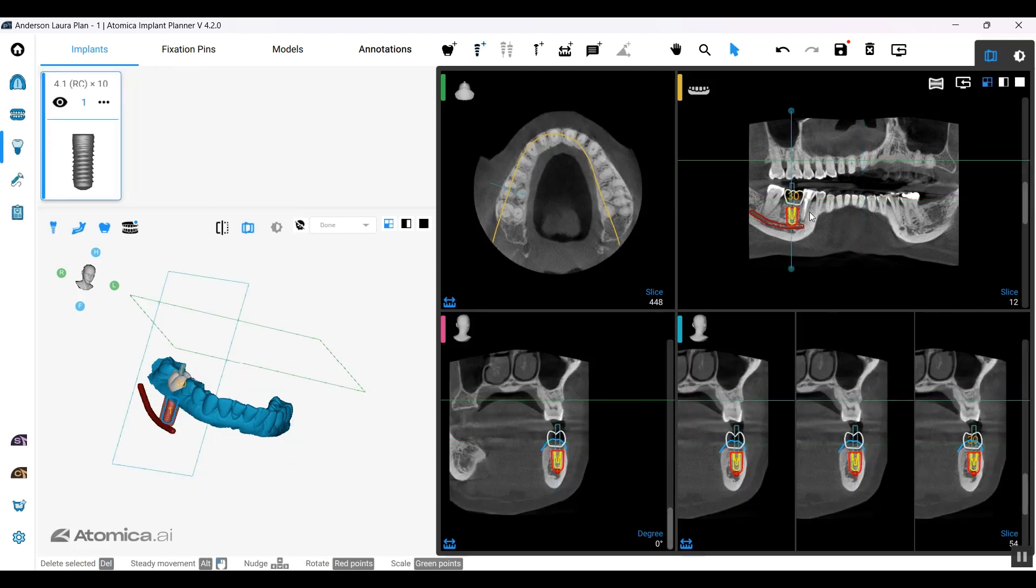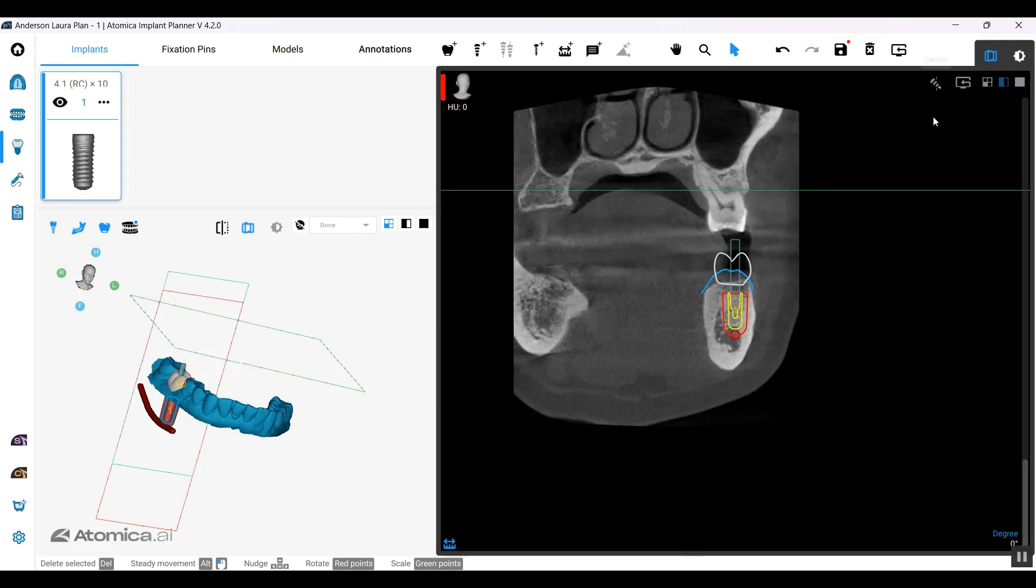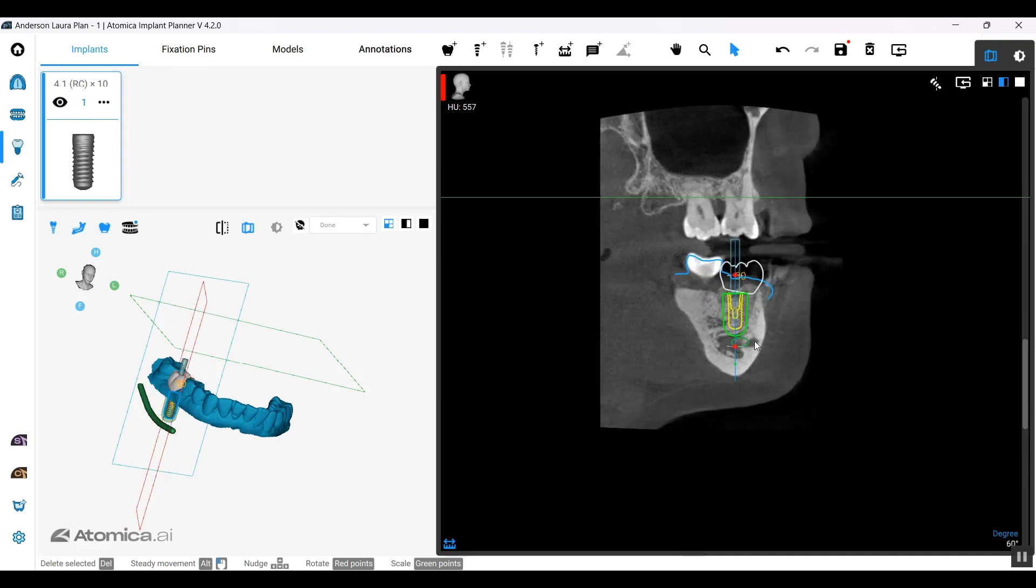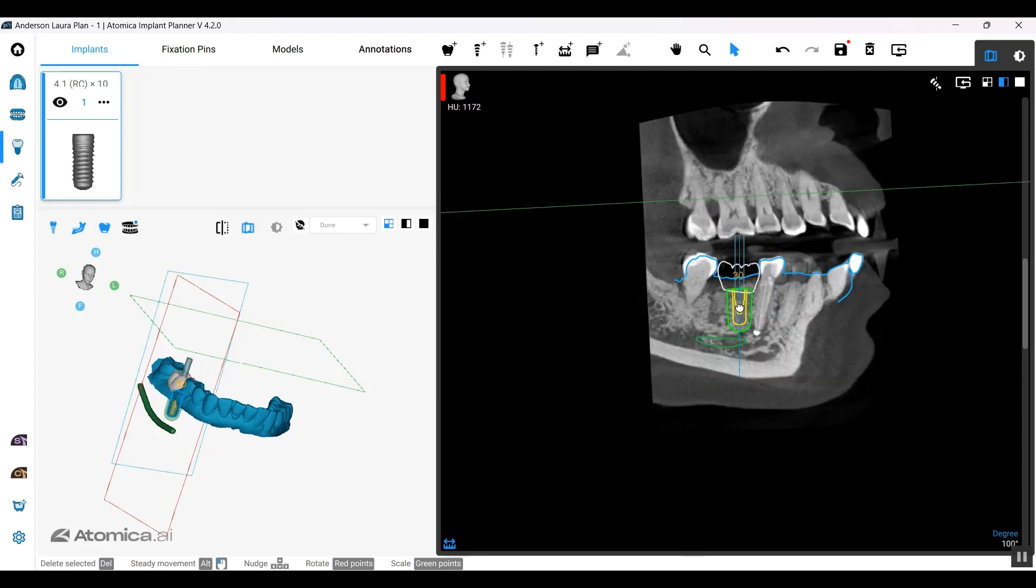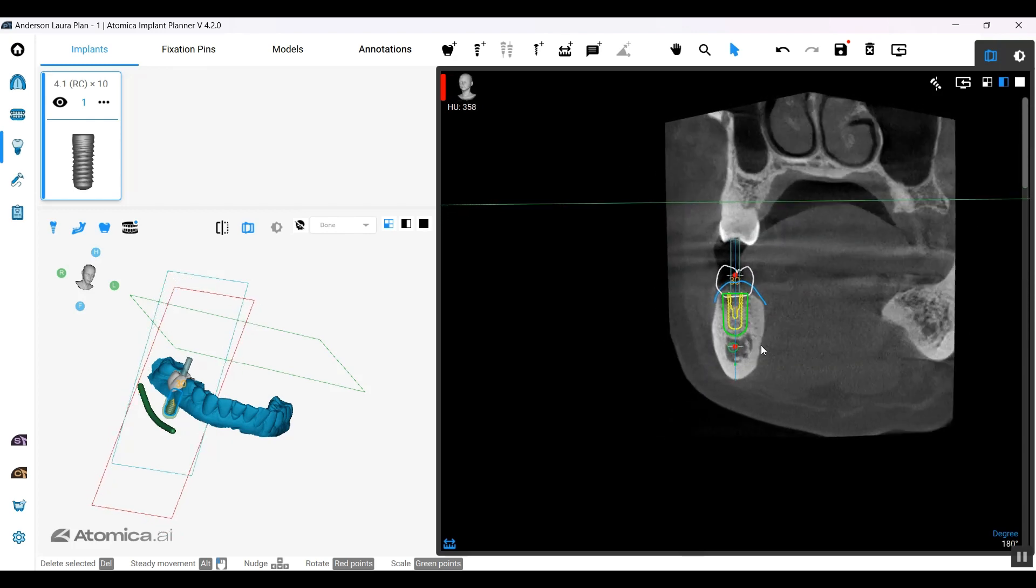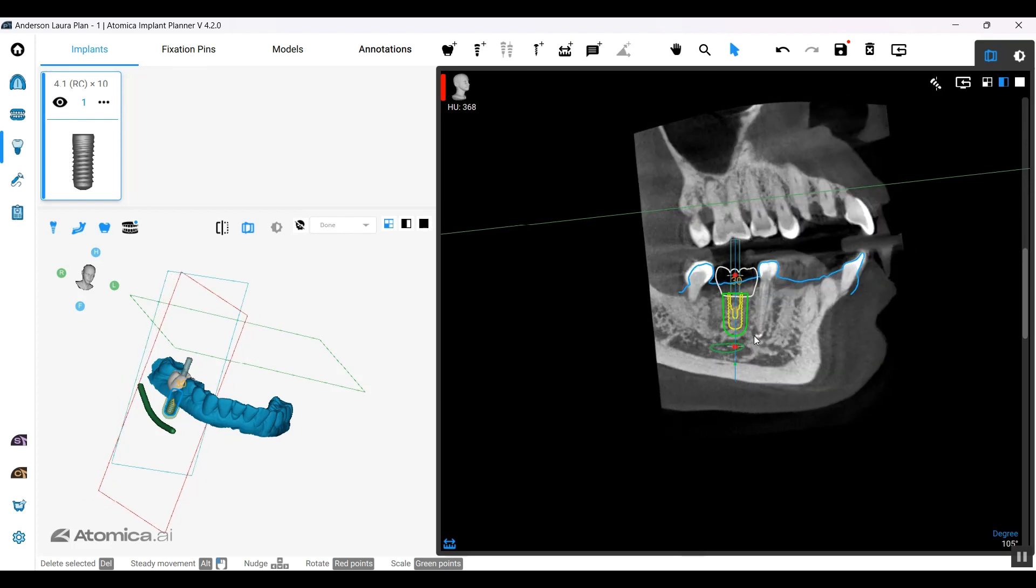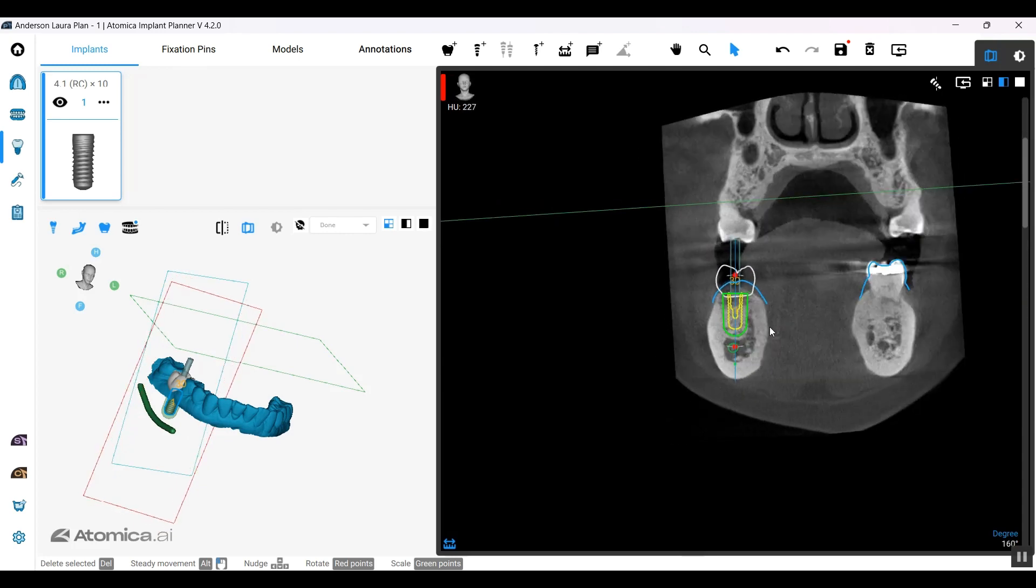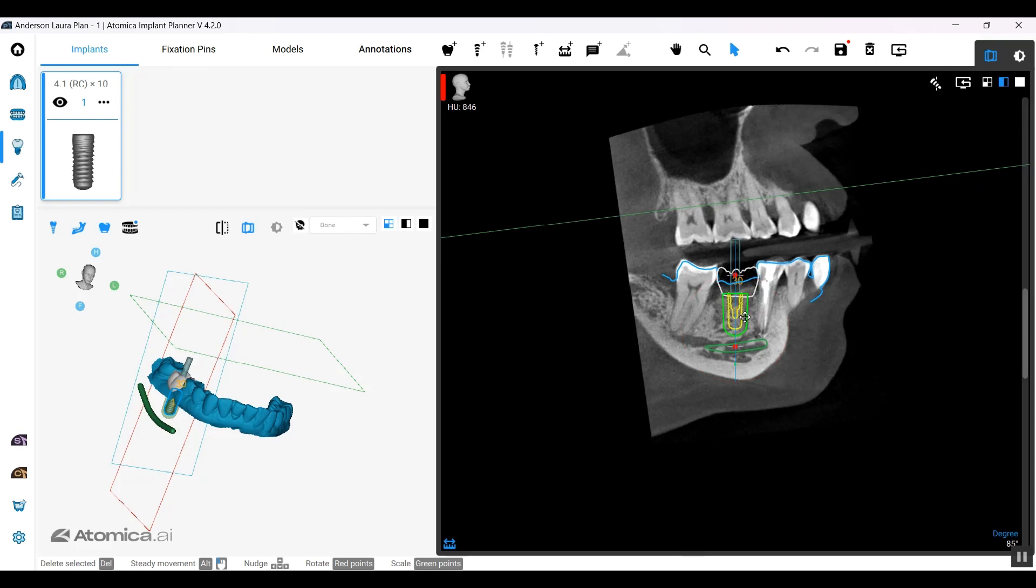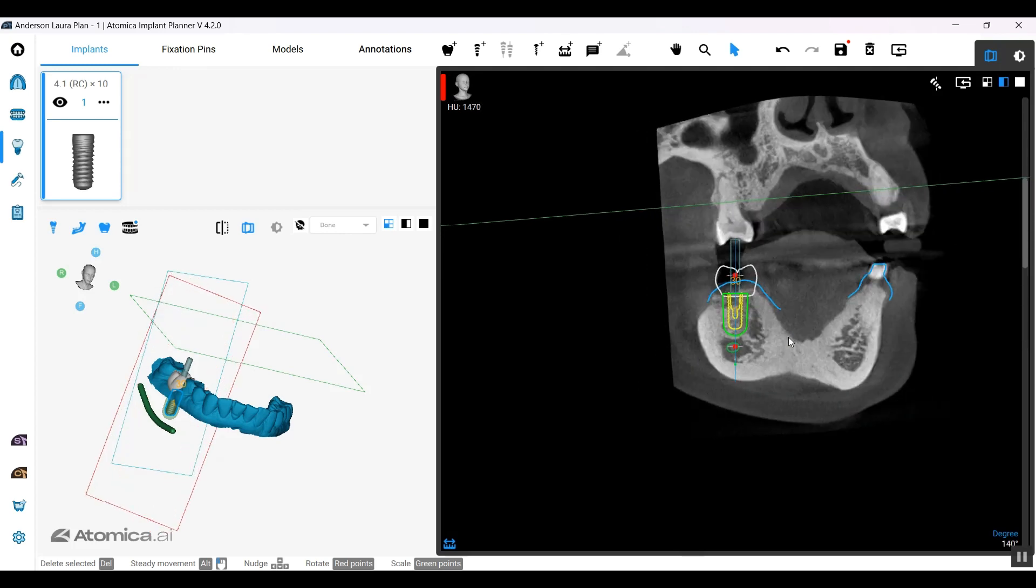I'm placing a 4.1 by 10 as an example. I'd like to add it into my panorama curve, and then we'll go ahead and start adjusting from that cross section using the option which is centric, that puts my implant in centric position so I can go around it. Let's give that a little bit of angulation. I guess a bigger diameter will do in that case. Okay, perfect.